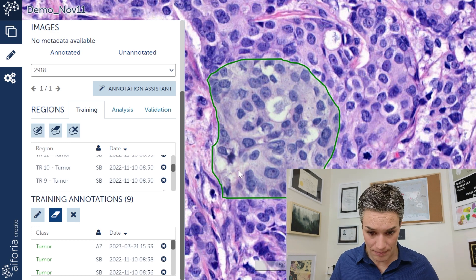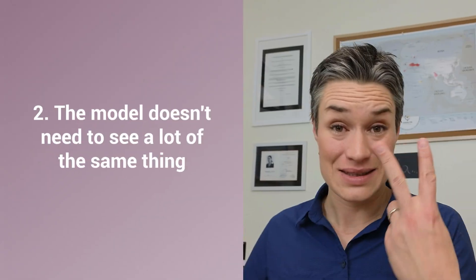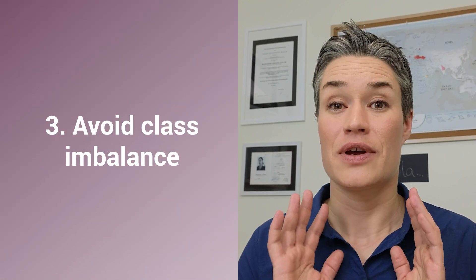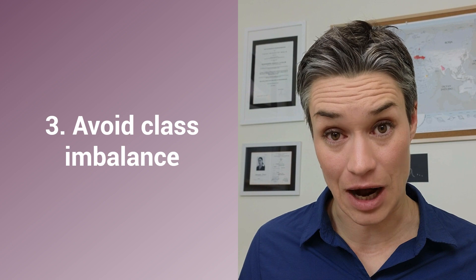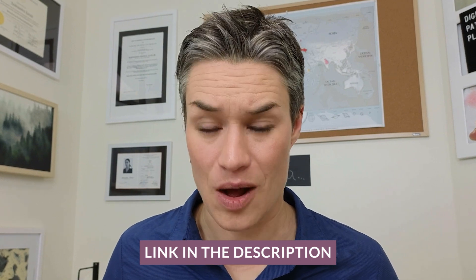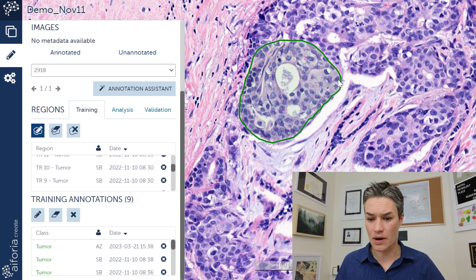I use the rubber tool to make it clean — I can even clean it more so that no stroma makes it into my tumor annotation. Number three: keep your annotations small. That might be counterintuitive, but here's why. First, there's less room for error. Second, showing a lot of the same thing to the model isn't helpful. Third, we have tumor and non-tumor classes covering different amounts of area, and we want to represent our classes in a balanced way to avoid class imbalance.